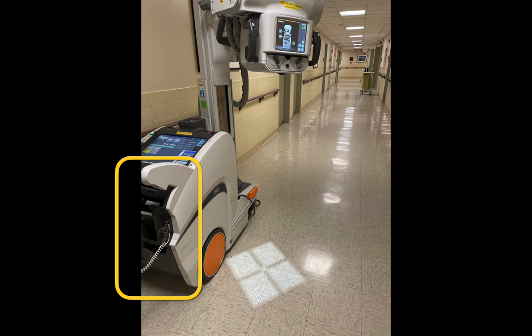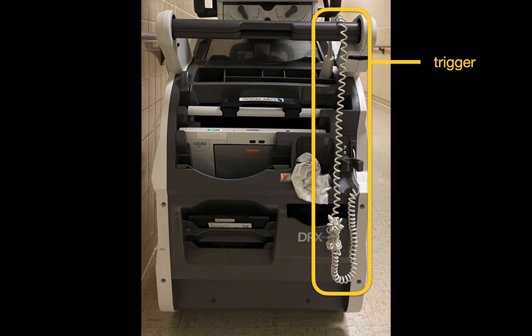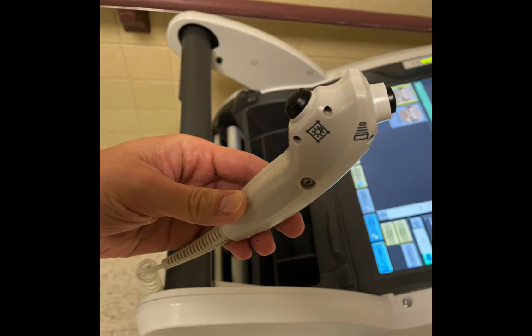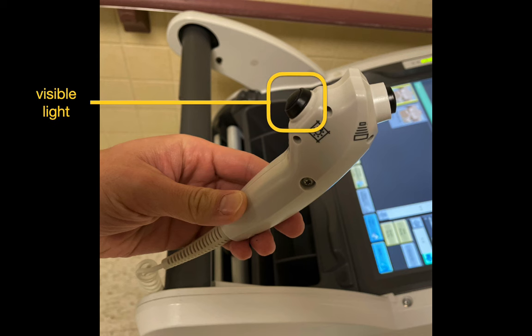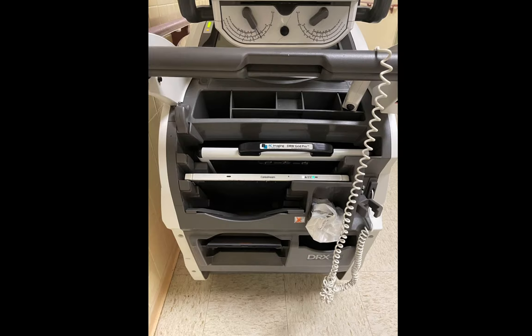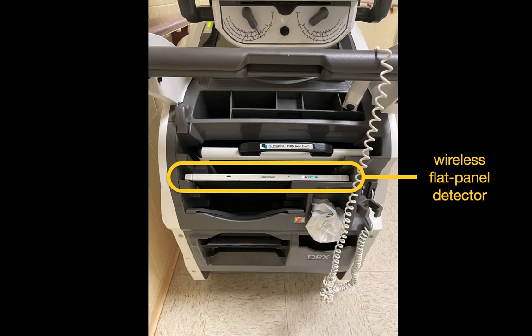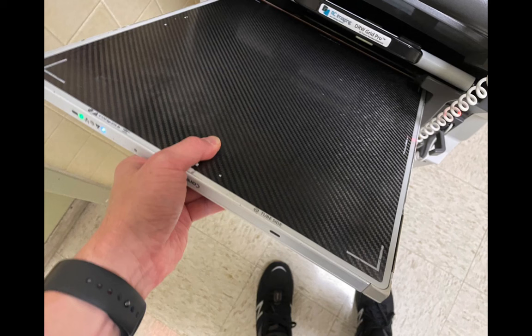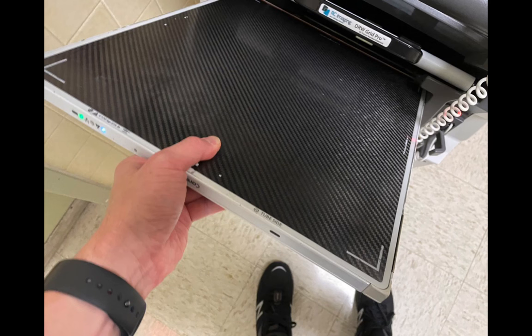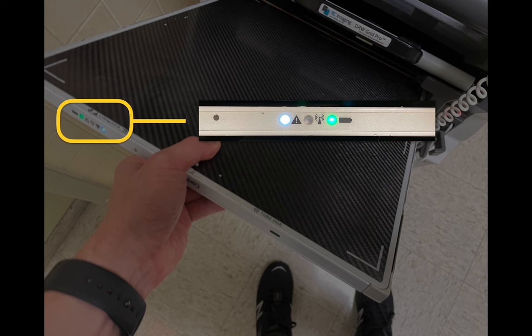Let's look at the rest of the back of this unit. On the right side we have a trigger that's connected to the unit by a long cord. There are two buttons on it: one for firing visible light out of the x-ray tube unit and one for firing x-rays. We've got a number of storage spaces in the back too, one of which holds a wireless x-ray detector panel. The detector panel is about half an inch thick; on one edge are some small LEDs that indicate error state, wireless data transfer activity, and battery charge.